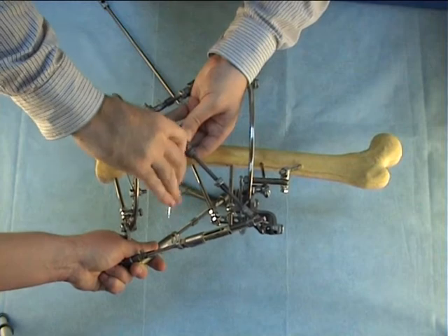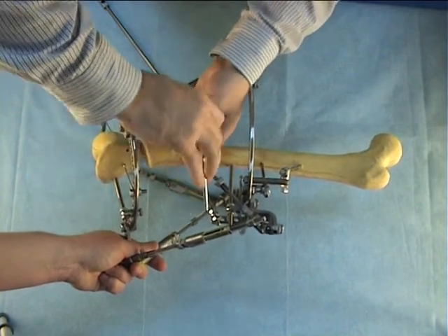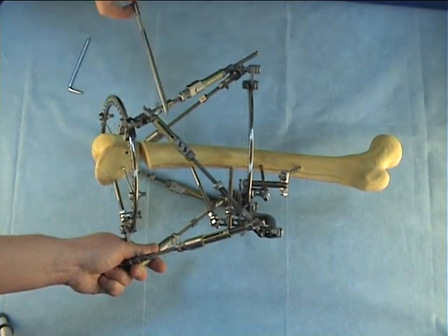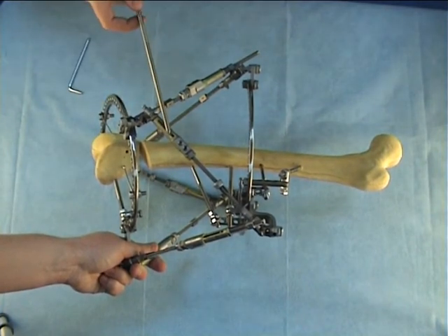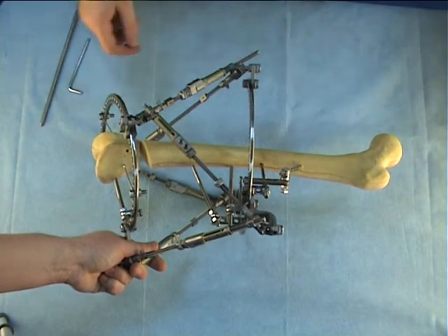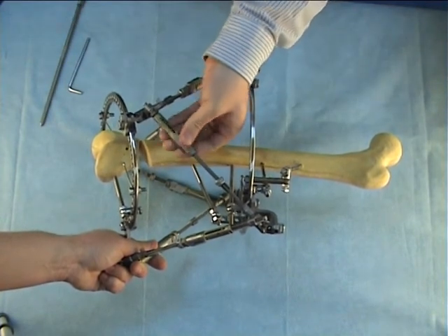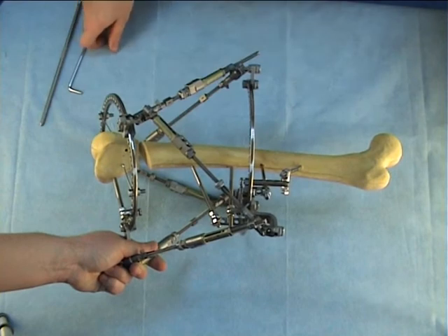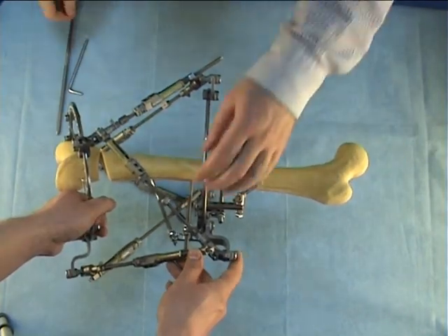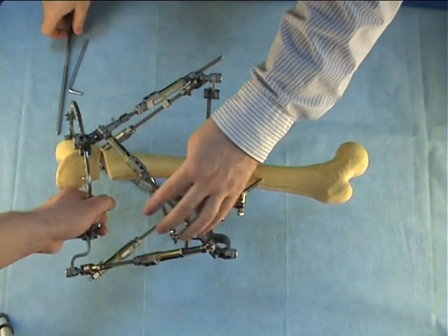Then we tighten the second screw by allen key. You see the indicator of the strut length — now the strut is possible to turn to make lengthening, as you see.